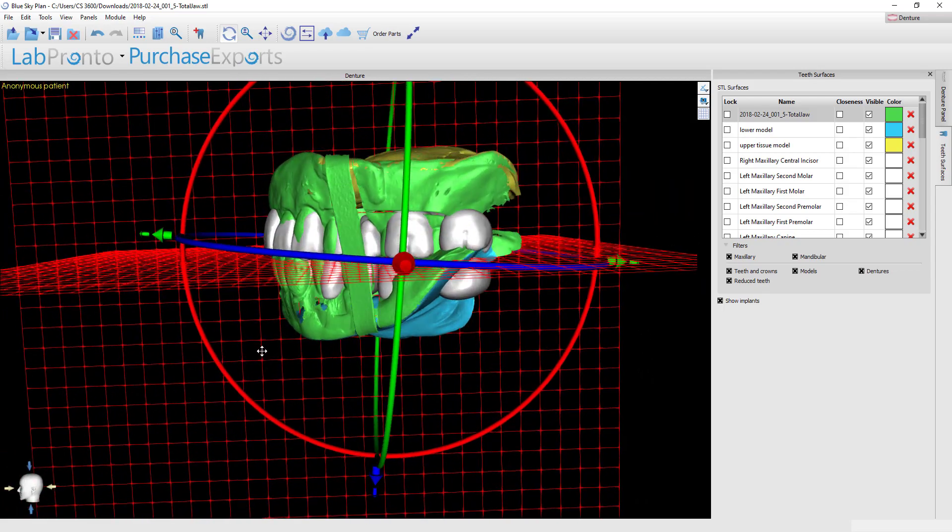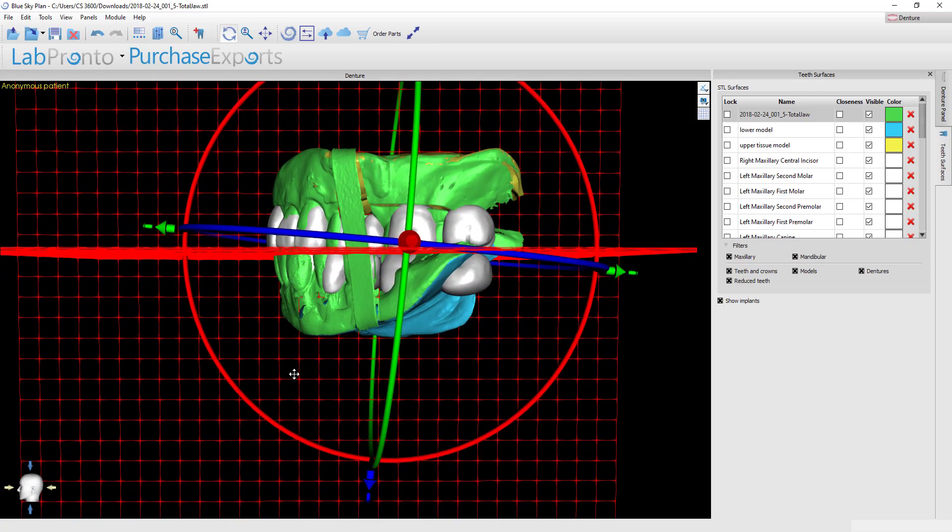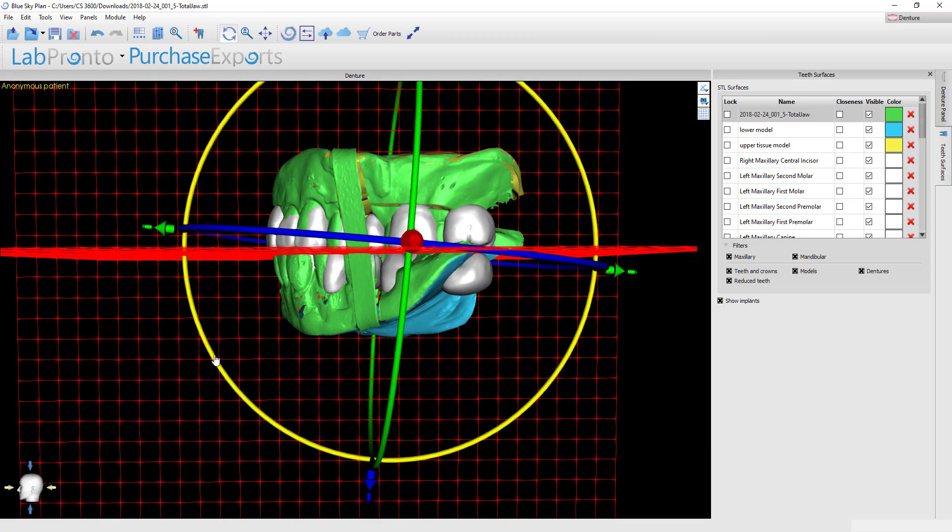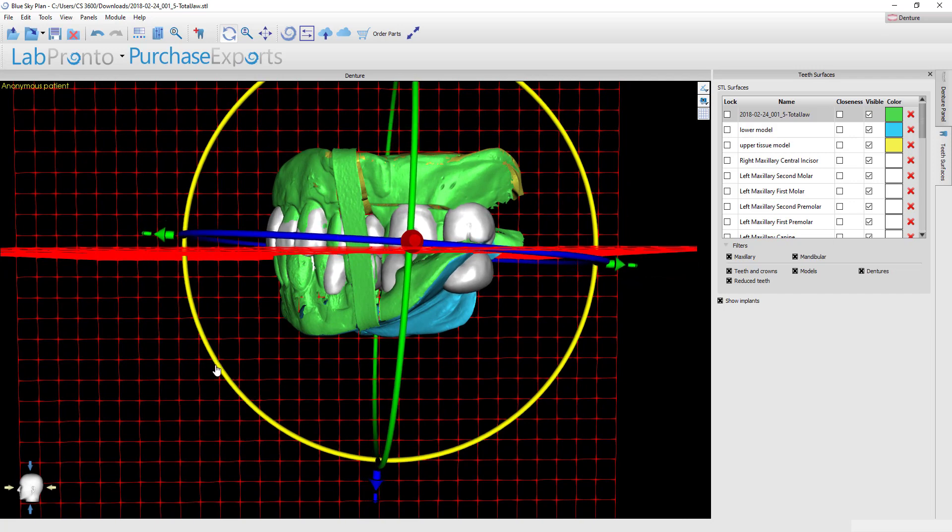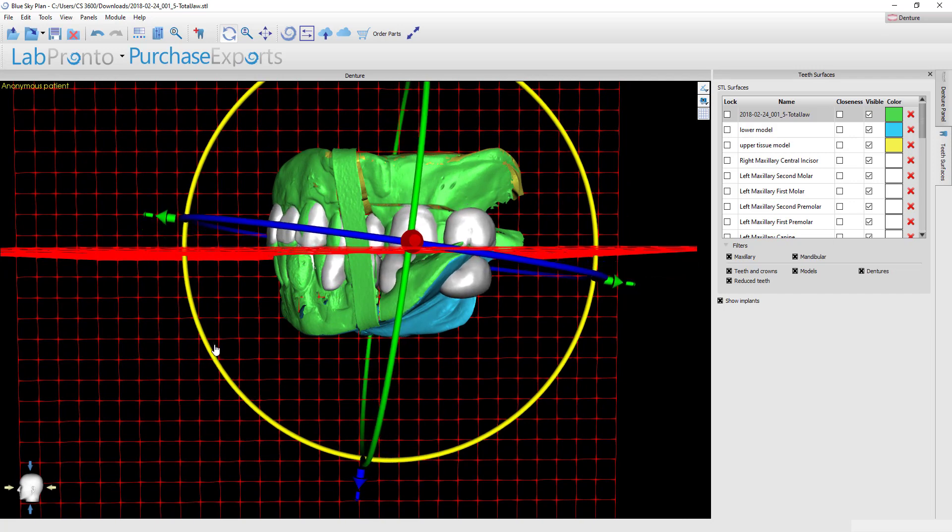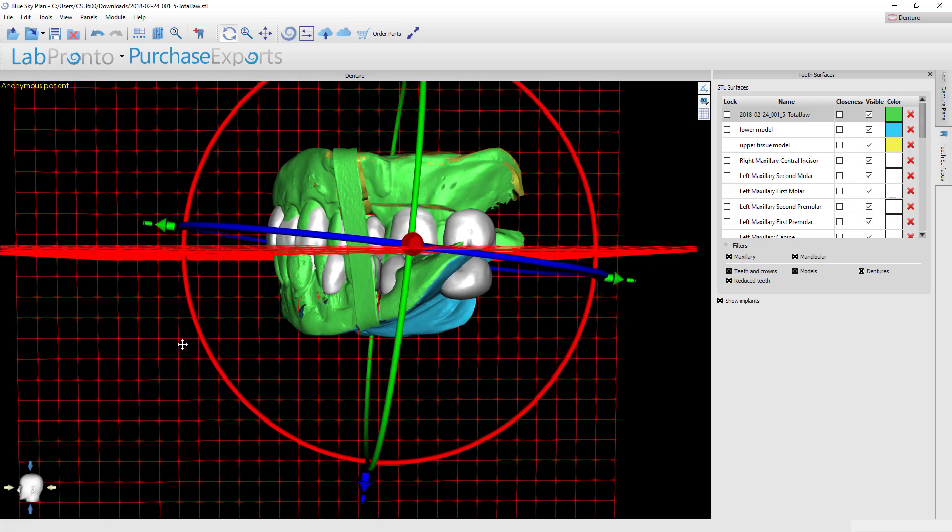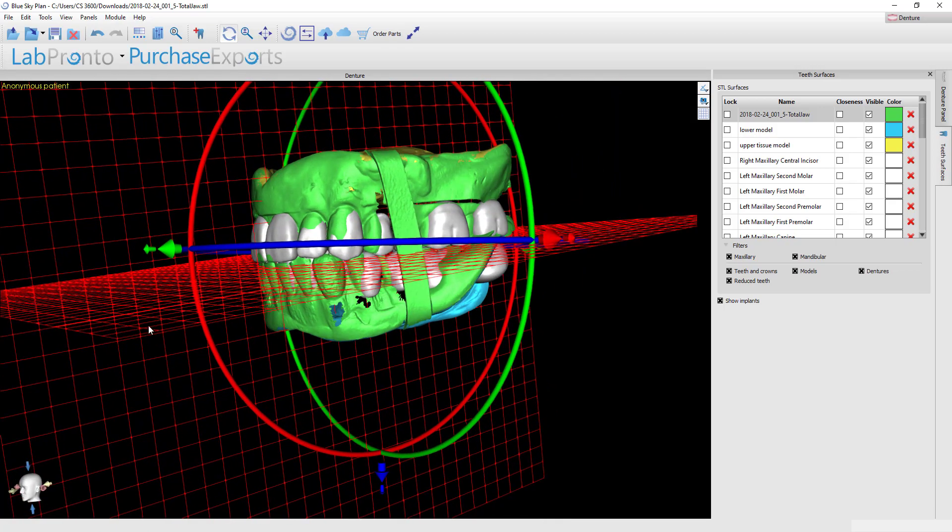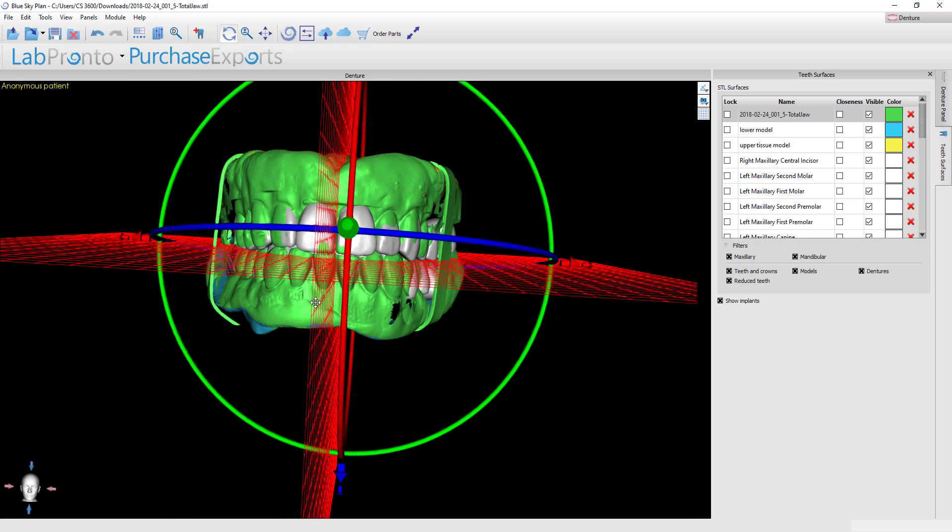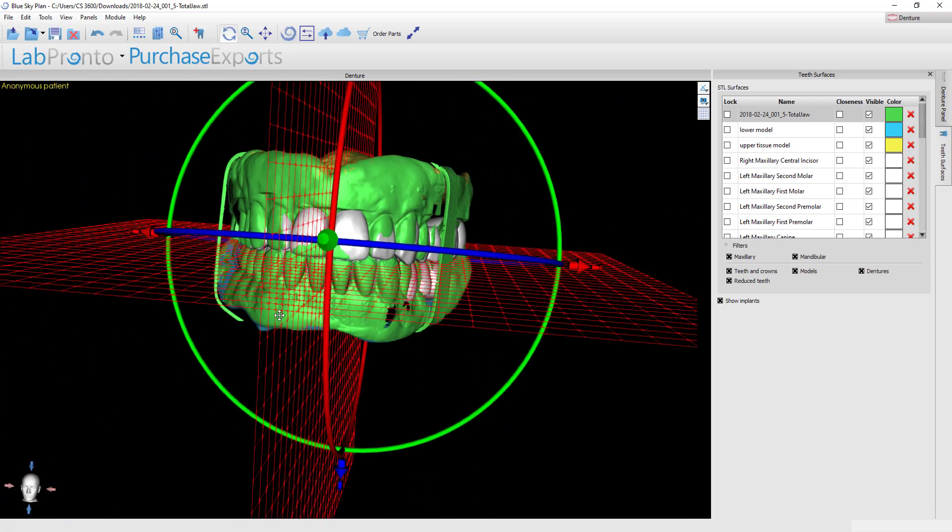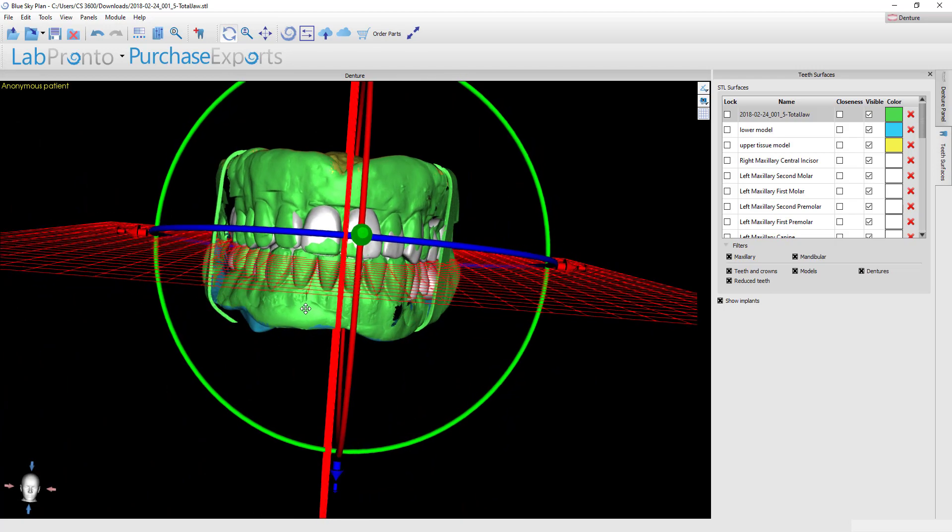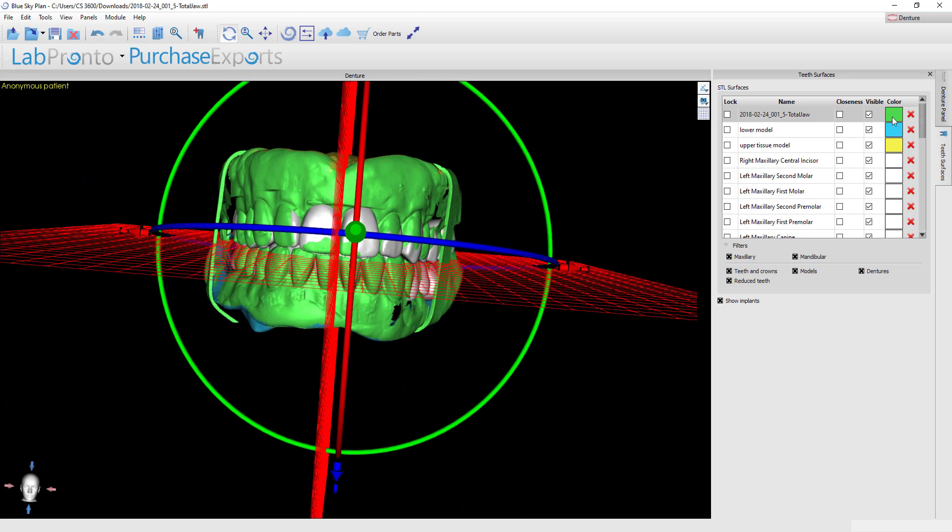Finally we just need to align the occlusal plane. You can grab the widget rotation rings and rotate this around until you make the occlusal planes coincide. That might require that you move around a little bit with the arrows to line up the anteriors again, but this looks like a really good setup.